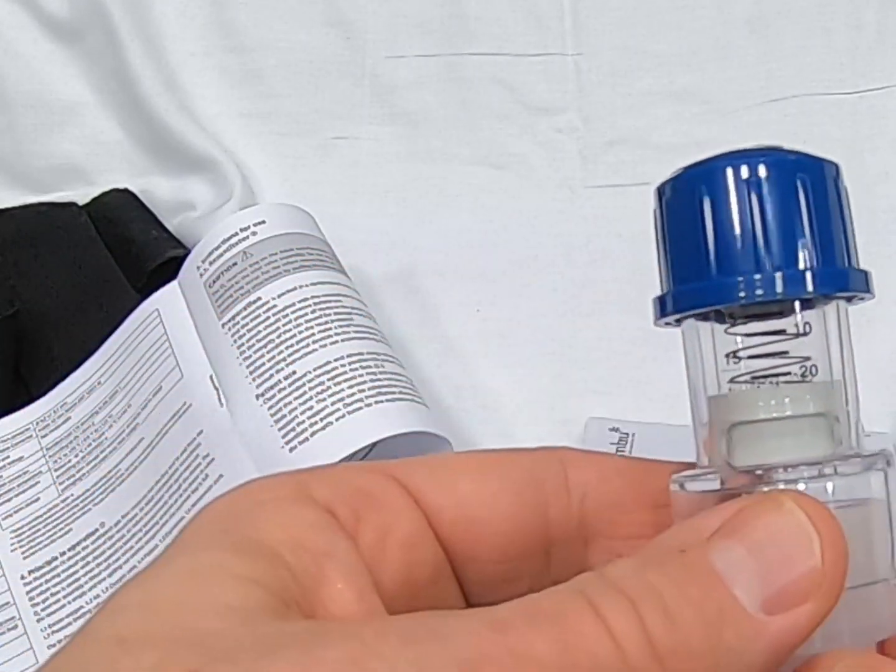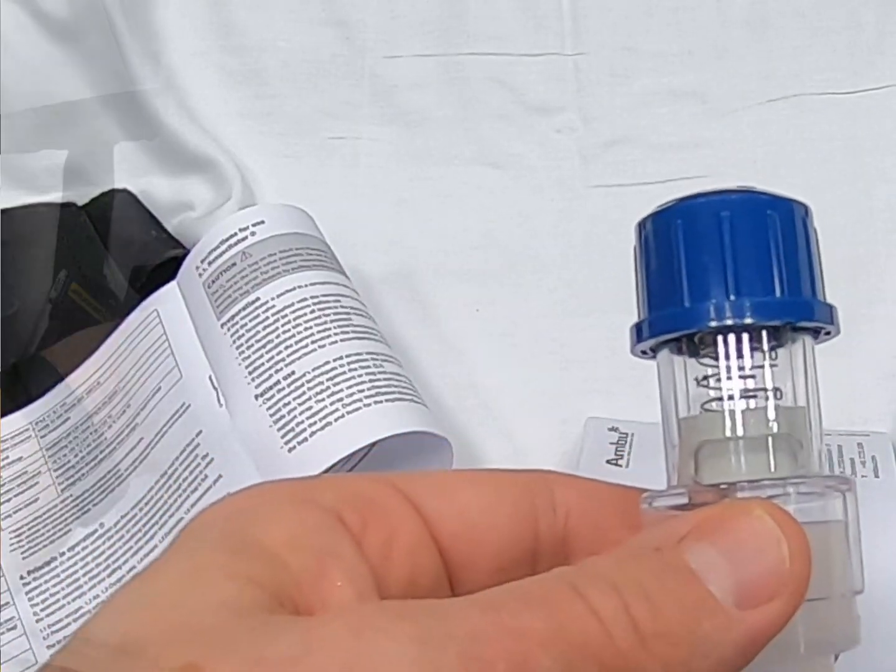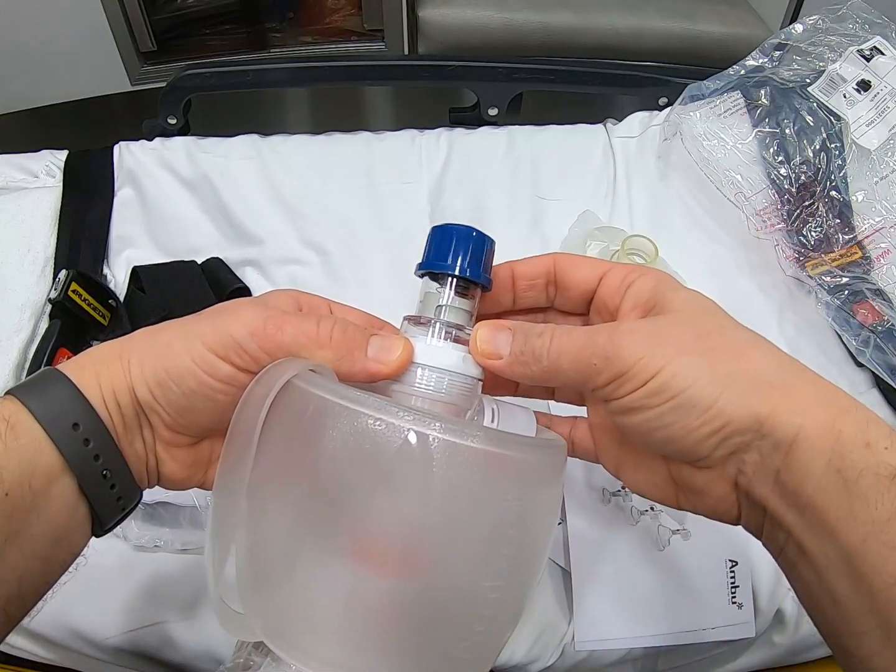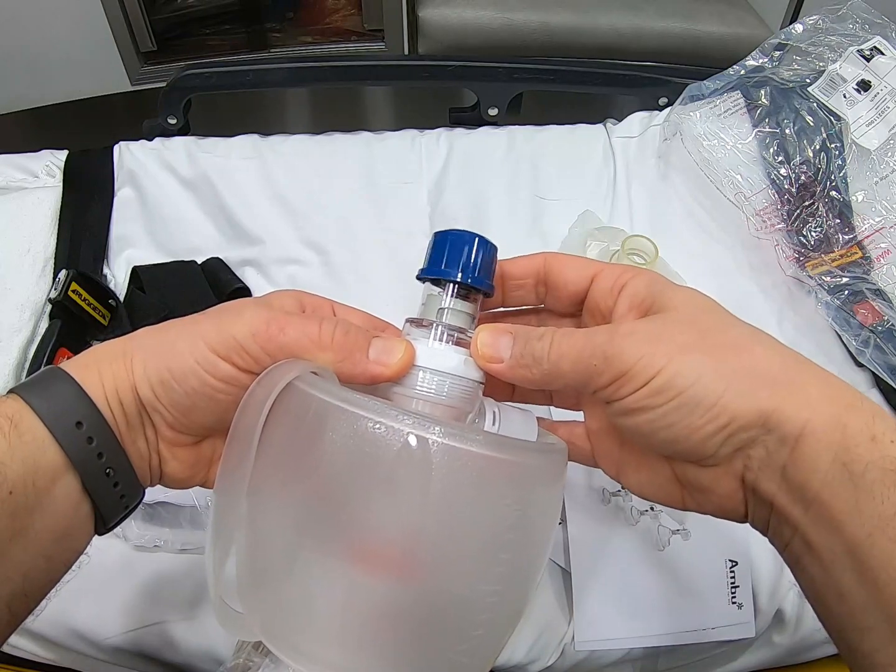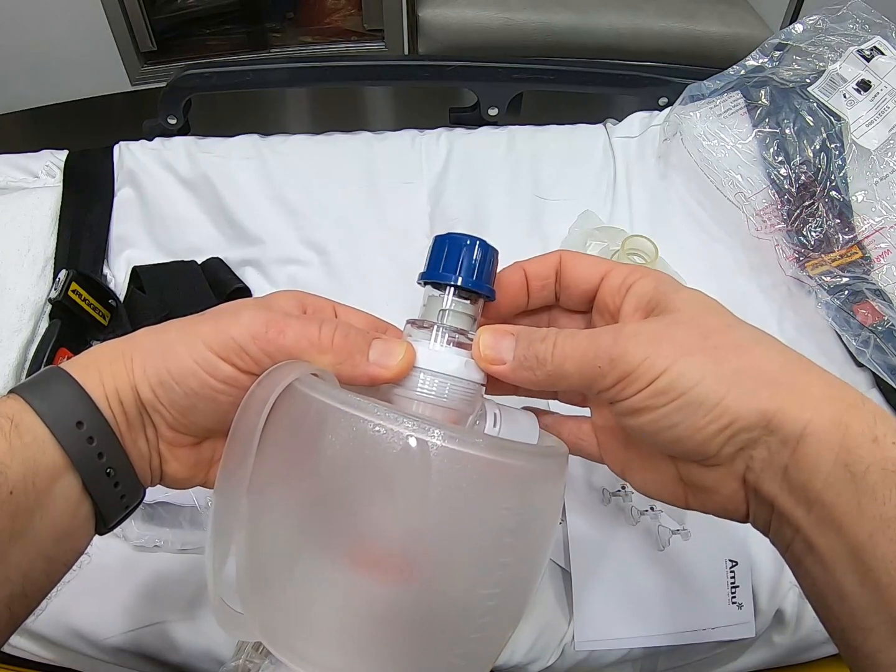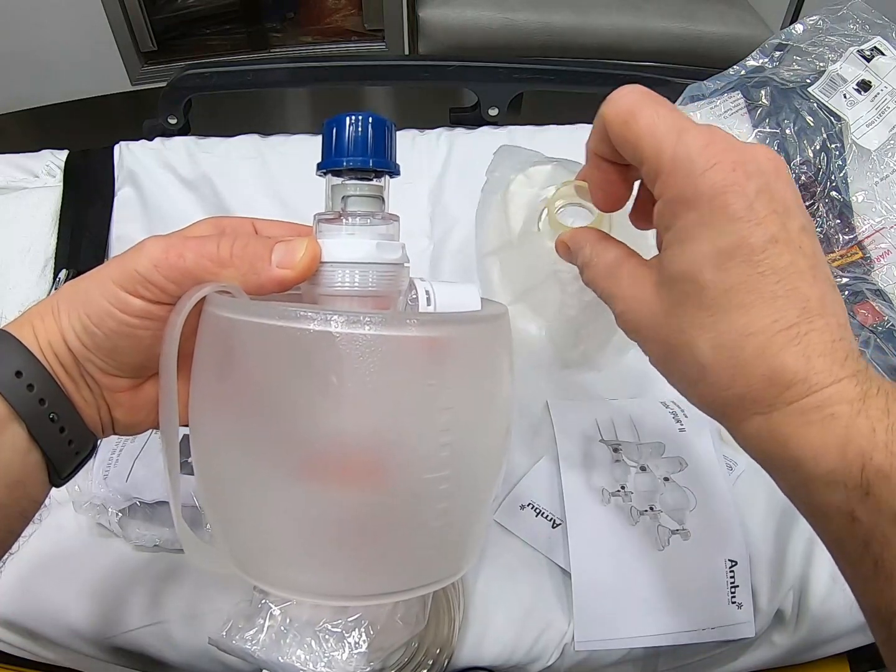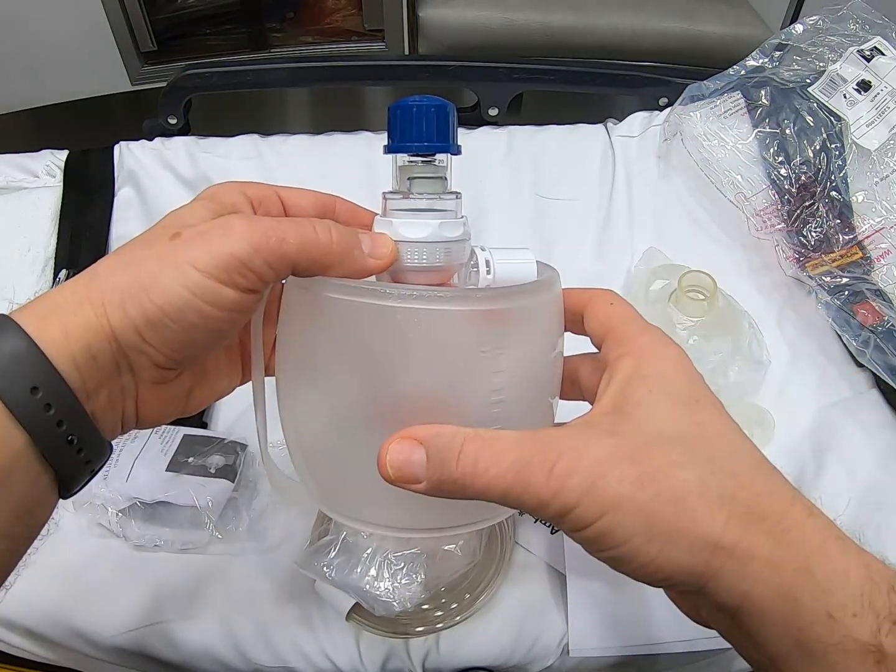You will need to have ten, there's a fifteen, and this will work whether or not you use just the mask with it or the endotracheal tube.